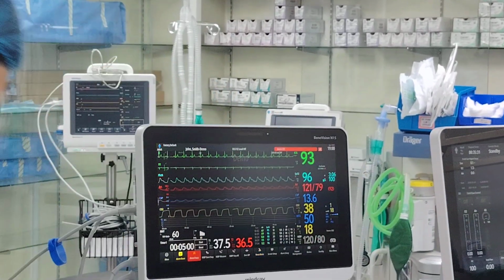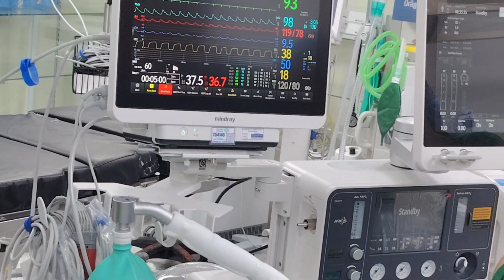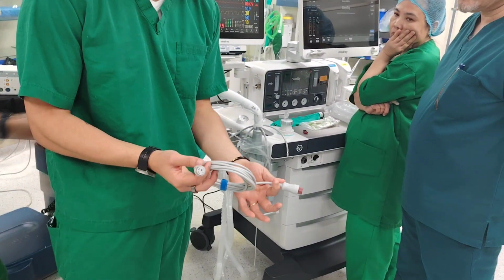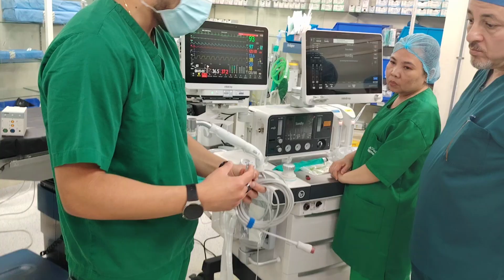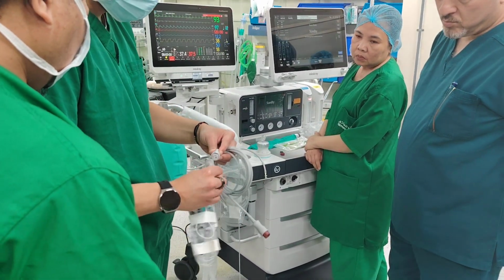Alright, and the way you do it, okay. Now we have multiple different types of connectors. From the patient side, from the monitor side, this is the same. Here, I don't have to be very honest, I don't know what you're using. This looks like an ICU Medical, if I'm not mistaken. And you have, yeah, very good. You see, you connect it like this.